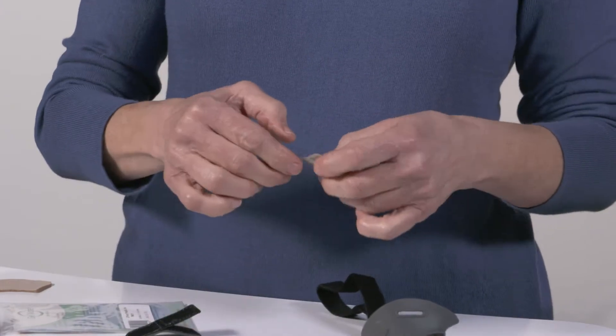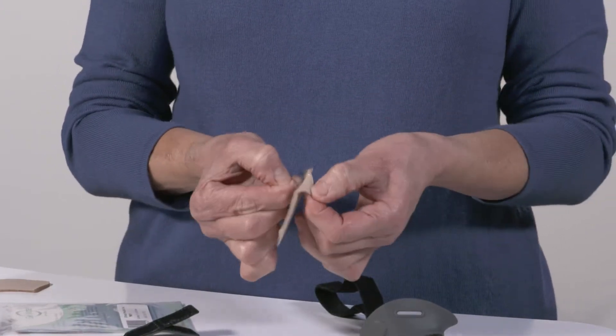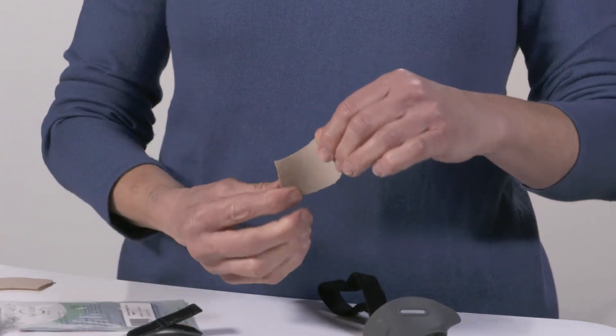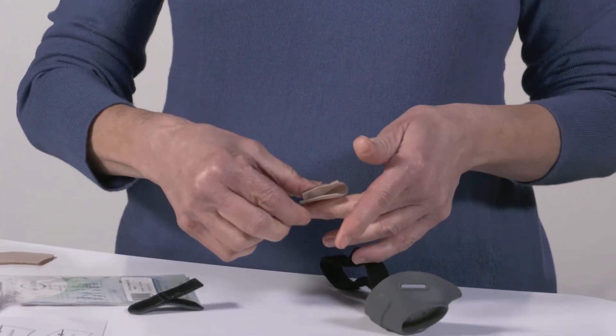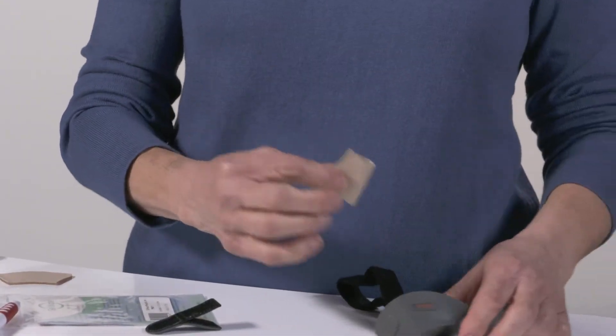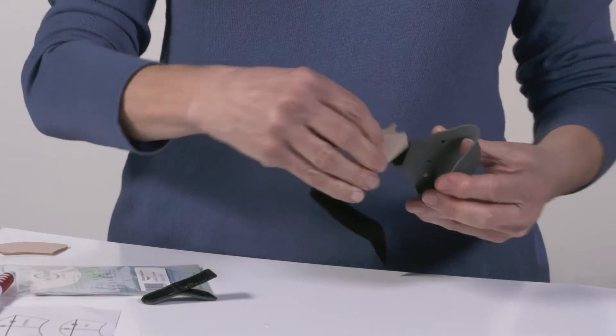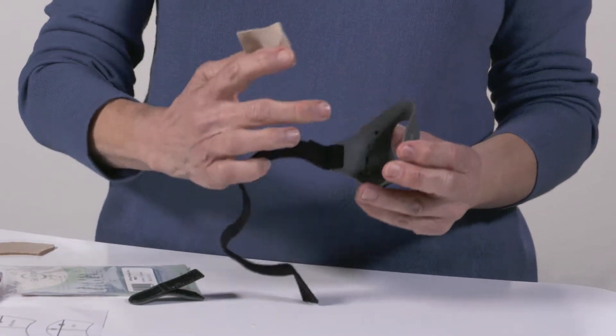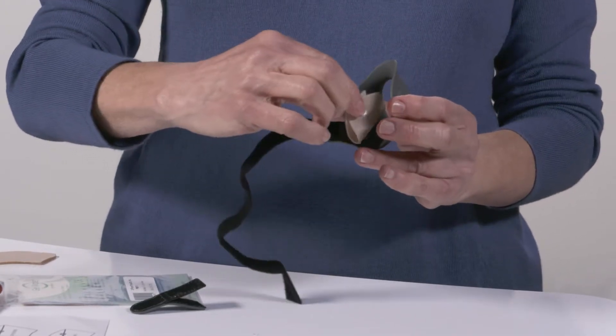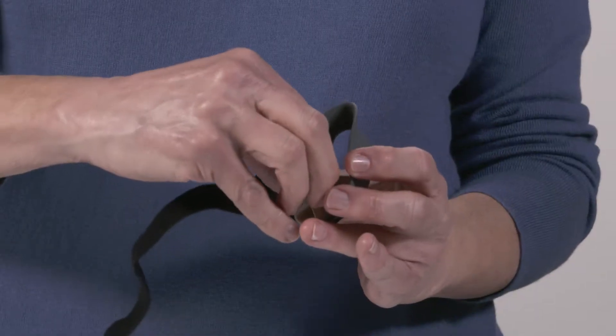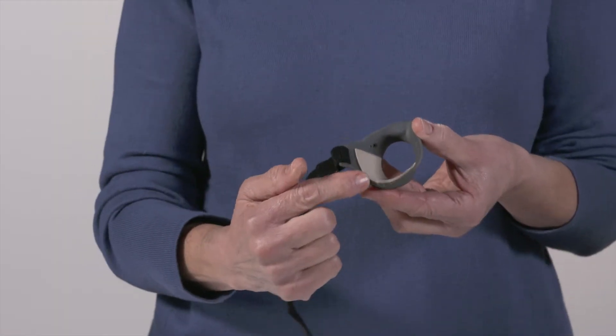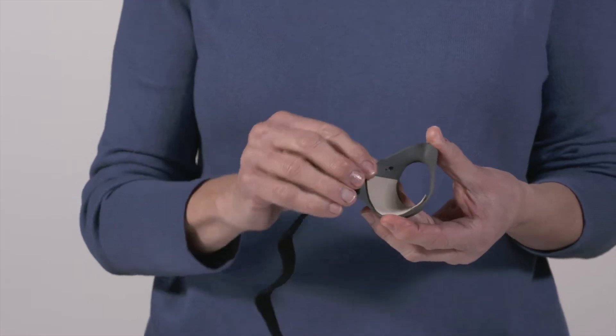Your next step is taking the plastic backing off of the gel pad and then fold the pad in half so the fabric side is touching. You want to try to position the top of the pad with the opening for the thumb. Lay that in place.